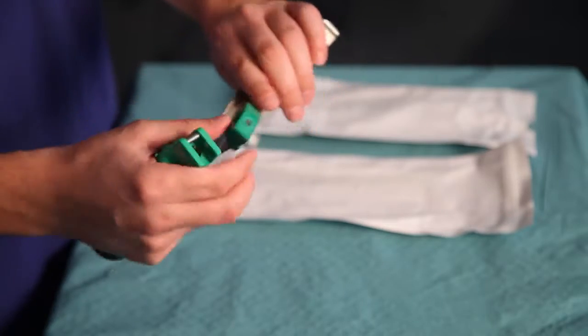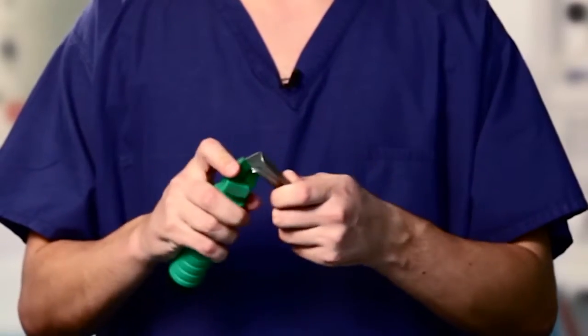We've got three sprung ball bearings which keep it very steady in the handle.